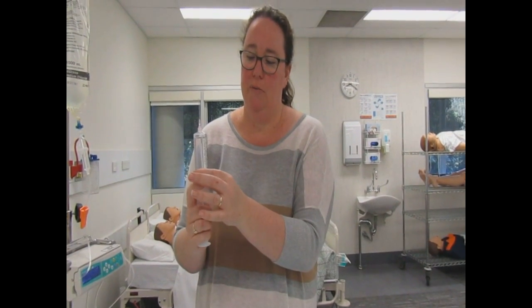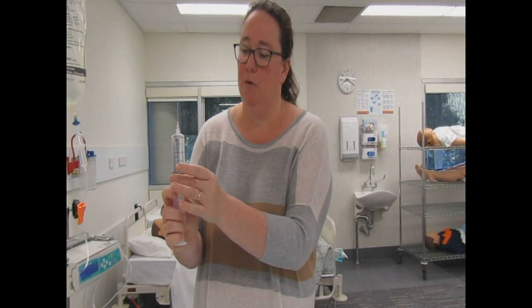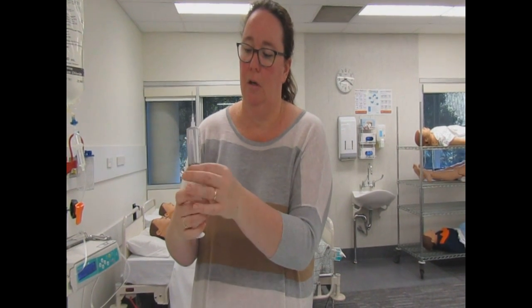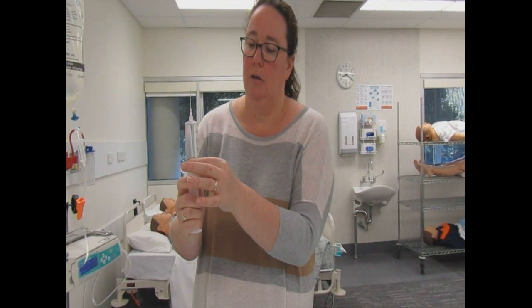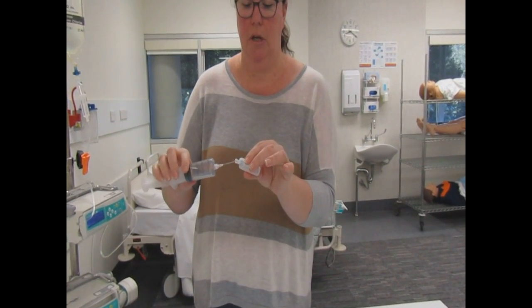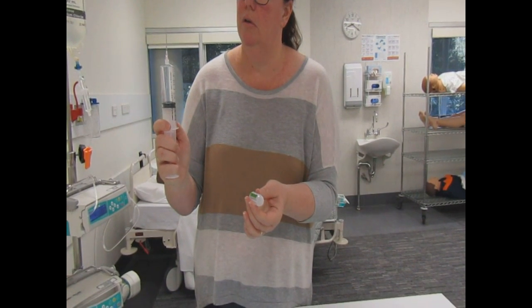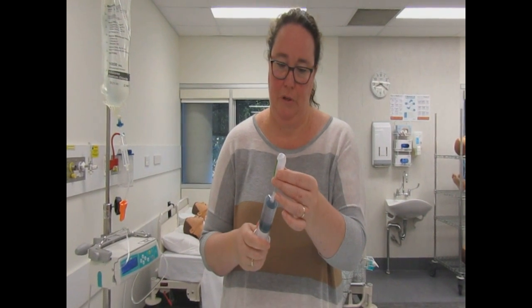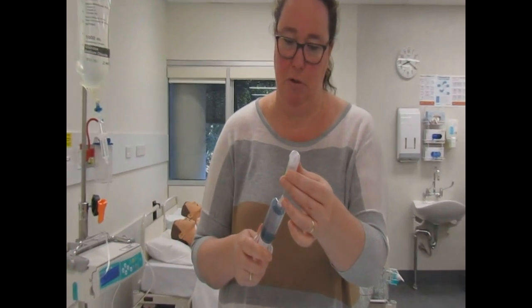I'm going to remove as many air bubbles as I can. You can see there are a few tiny ones, hopefully down the bottom. Unfortunately they probably won't go away, but we'll do our best to get rid of most of them — they won't actually go into the patient; you'll probably change the syringe before we get to that point. Then I'll carefully take it down to 50mls.